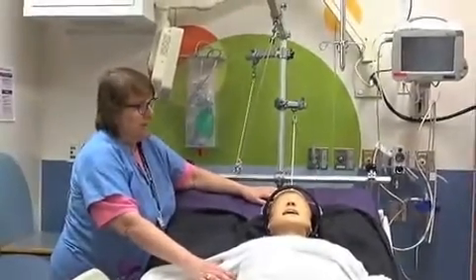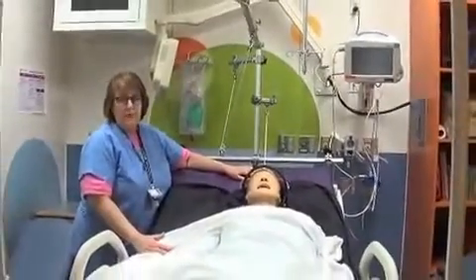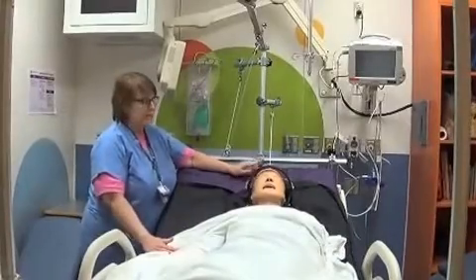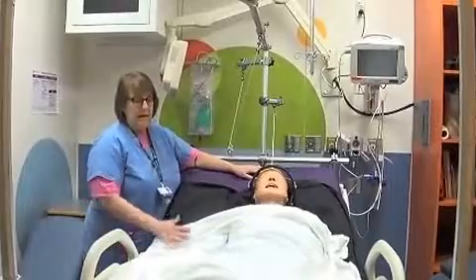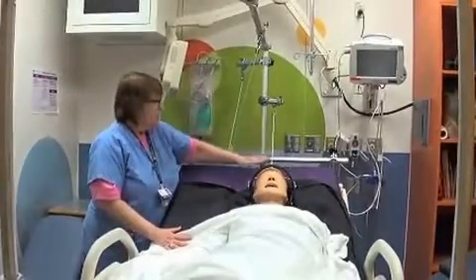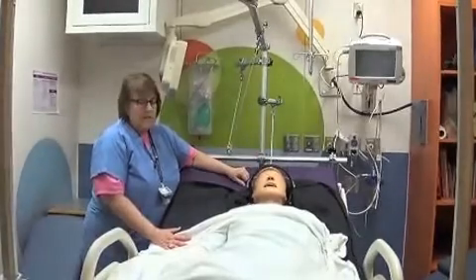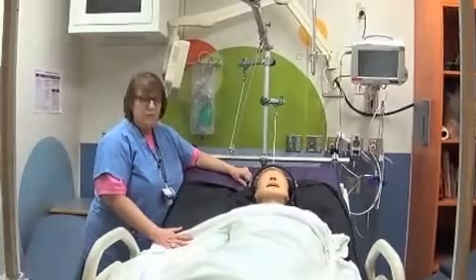When they're in bed, the basic settings — the bed is always at 30 degrees. They're not flat in the bed unless there are orders for it. Primary settings are at 30 and 90. These beds measure 30 on the side of the bed. The setups are done so that this will run free and there shouldn't be a change unless you're told by the doctor.